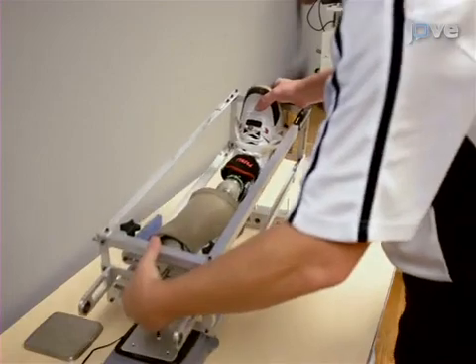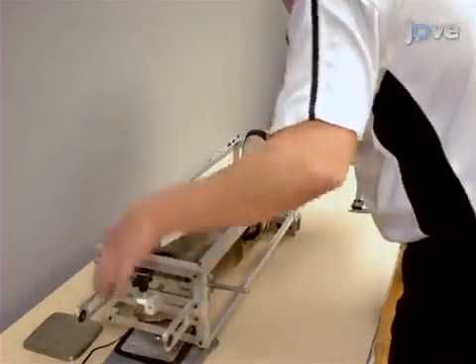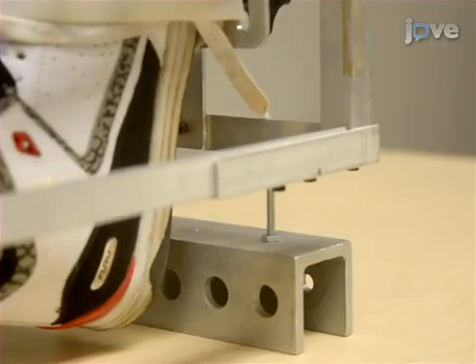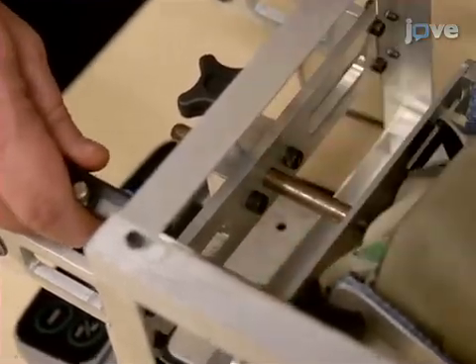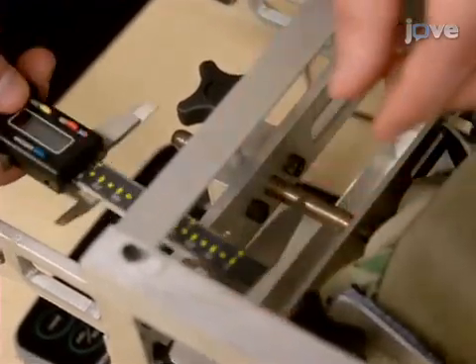Prior to shifting the reaction board measurements, keep the prosthesis fixed in the rack and position the inner cage horizontally, resting it on the knife edges. Then, record the distance between the top adjustable plate and the fixed cross member at the top of the inner cage, using digital calipers and a flexible measuring tape.